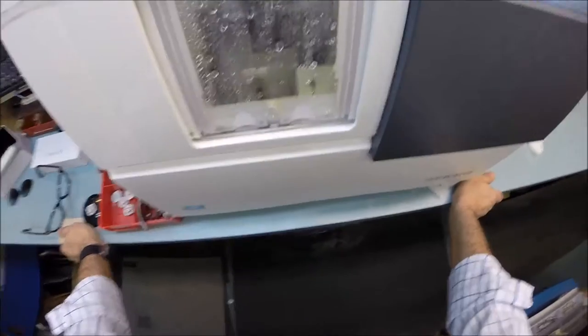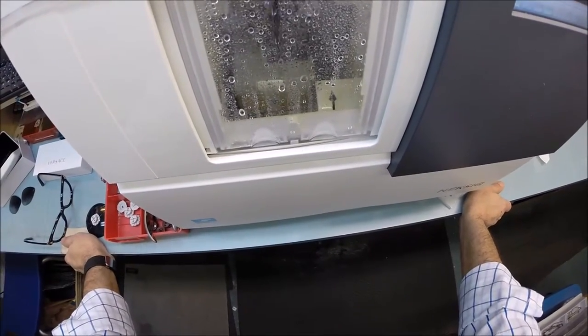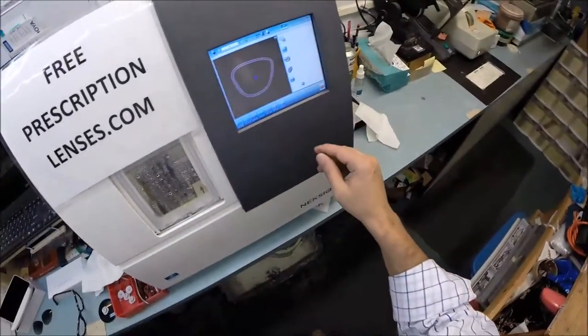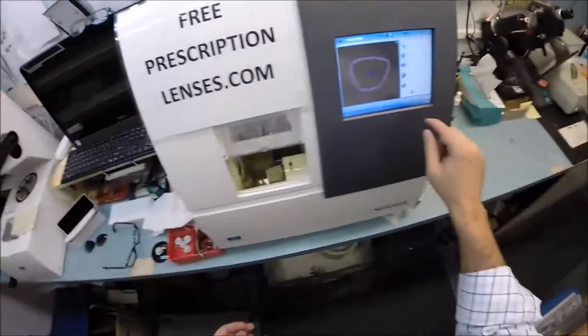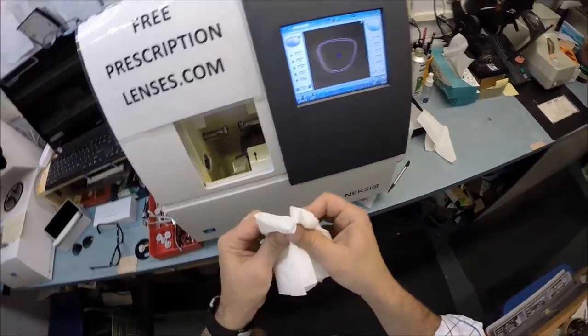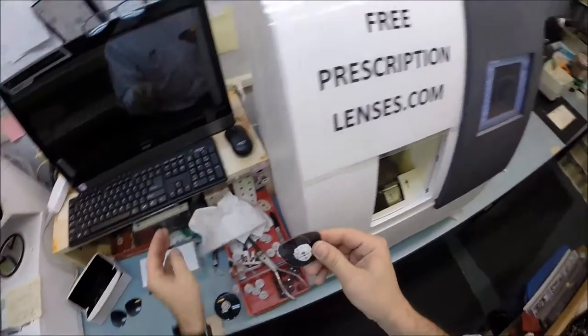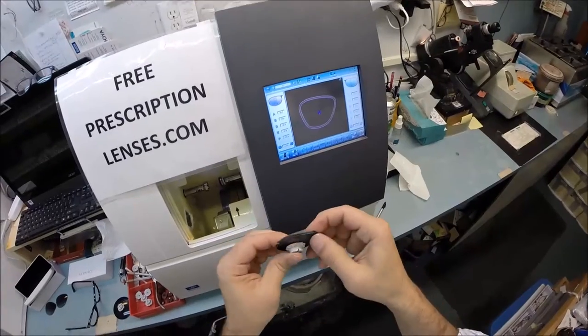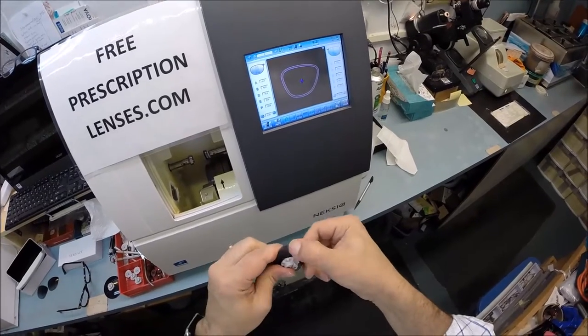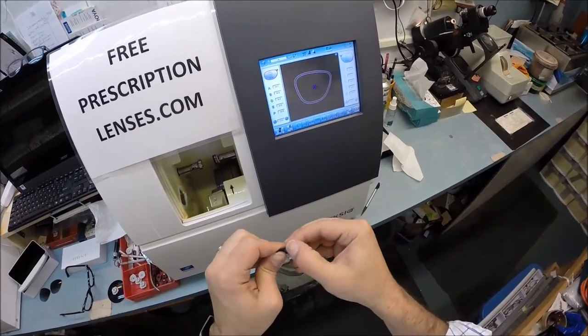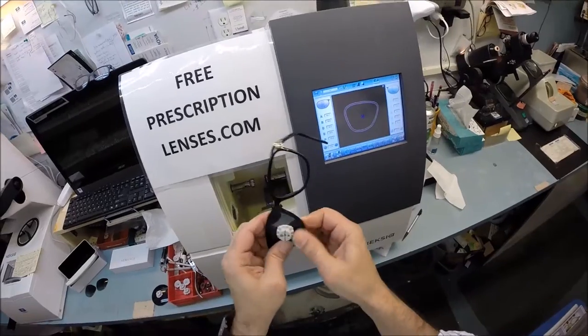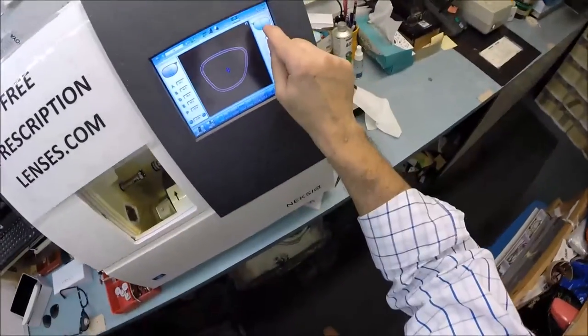I am a perfectionist and I cut every pair of lenses that gets shipped worldwide with free shipping anywhere in the United States. I make sure every lens is cut perfectly before it goes into any high quality frame. I just can't afford to offer low quality frames. My slogan: everyone loves a bargain and no one is disappointed with quality. I'm just going to wipe away that residue. Now the lens pops in easily.